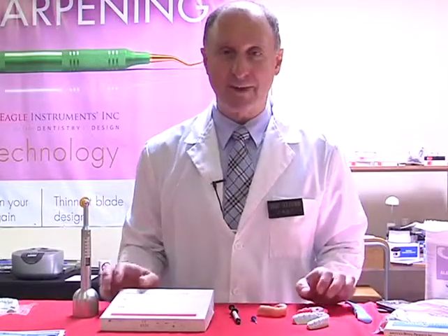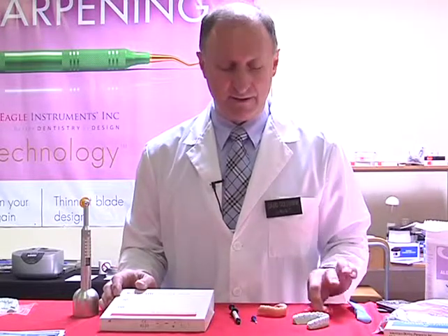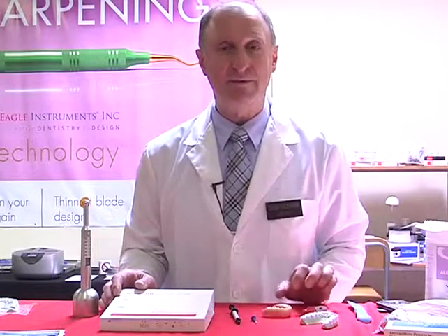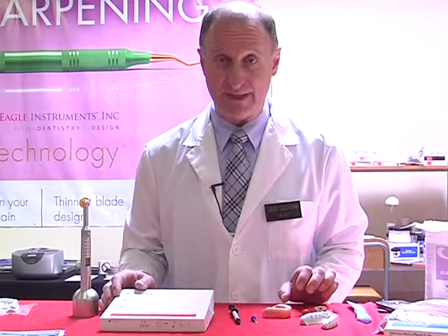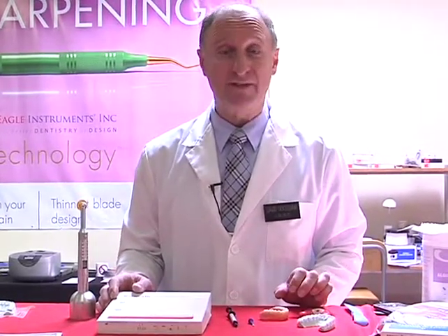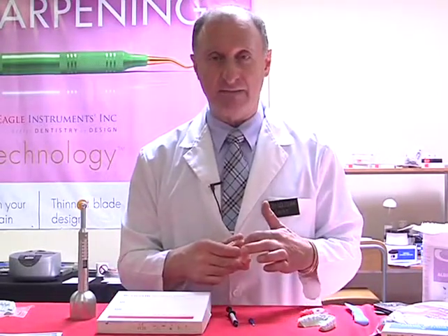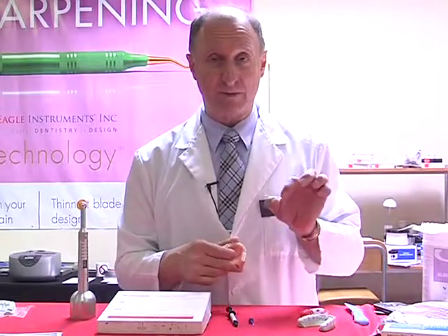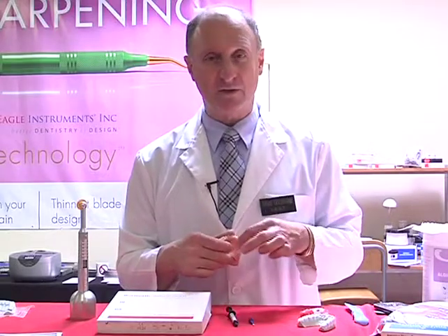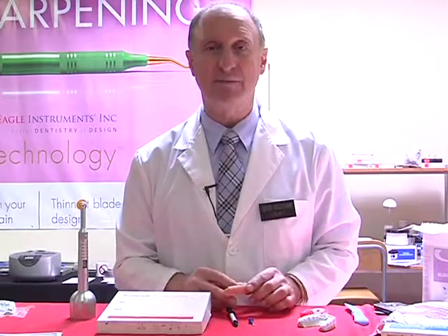I'd now like to talk to you about how to identify a mouthguard, a bleaching tray, or even a denture. I'm talking about putting information on it to personalize it for that patient, should there be a problem, an allergic reaction, or whatever. Normally it's very difficult to do so. Normally we'd have to grind a channel out of a denture, put a strip of metal imprinted with information or muslin cloth in, put it back, and cold cure over. All that takes a lot of time to do. So instead of that, we're going to have a much simpler method.